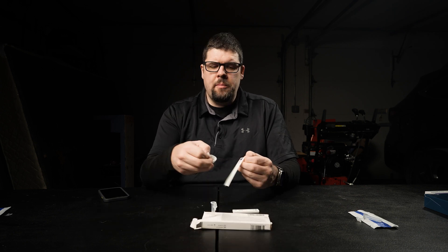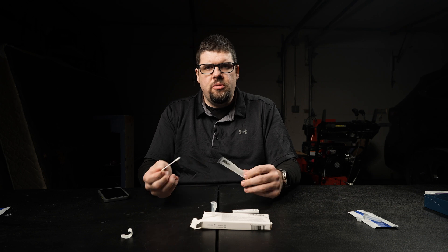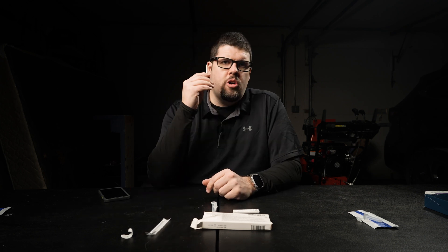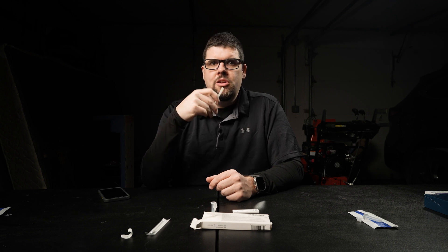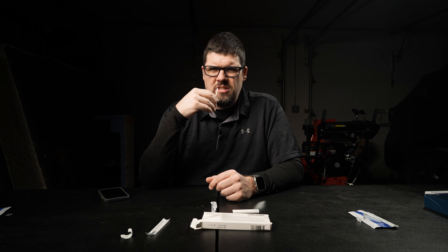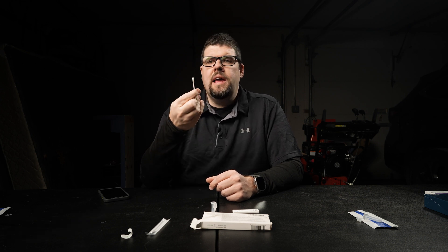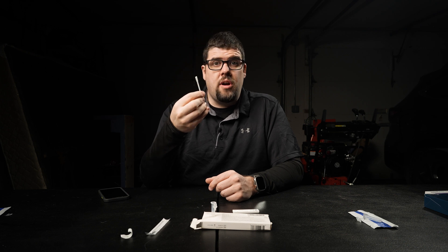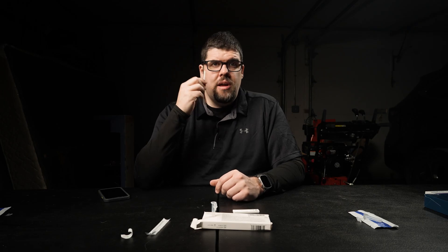Now I'm going to take out my swab and put it into my nose — roughly a half an inch to three quarters of an inch in. I'm going to go around five times counterclockwise and then clockwise, then go in the other nostril. I recommend that you blow out gently while doing this, just a little bit, so you get some moisture on the swab. The drier your nose is, the more it's going to hurt, so you want your nose to be lubricated.